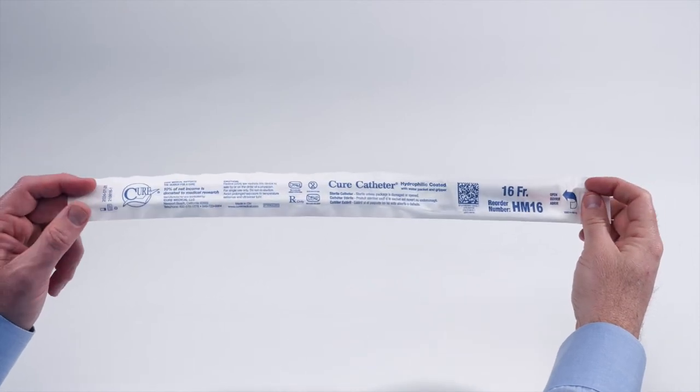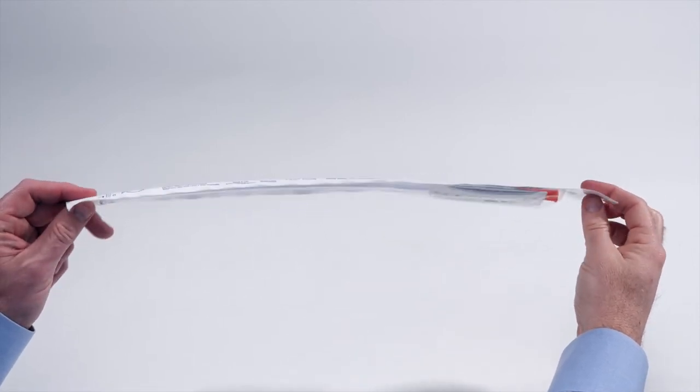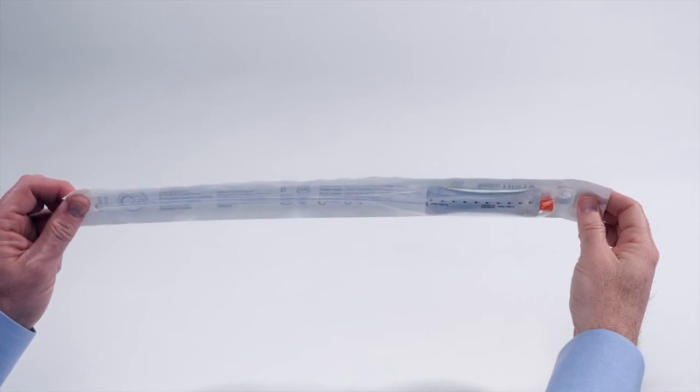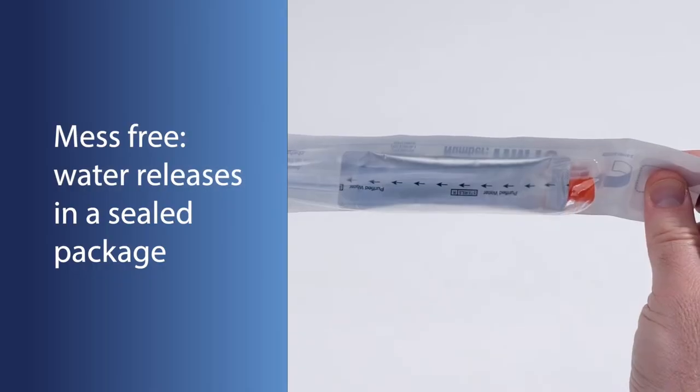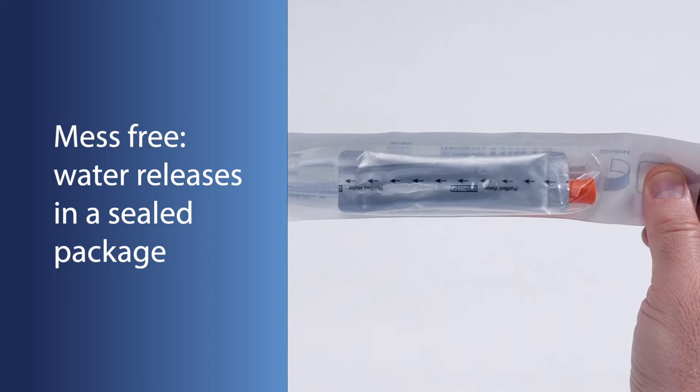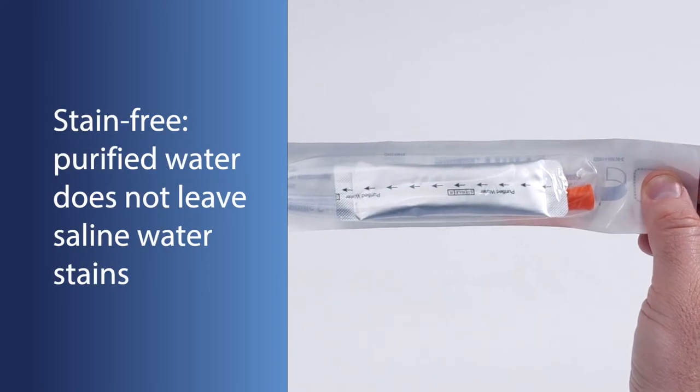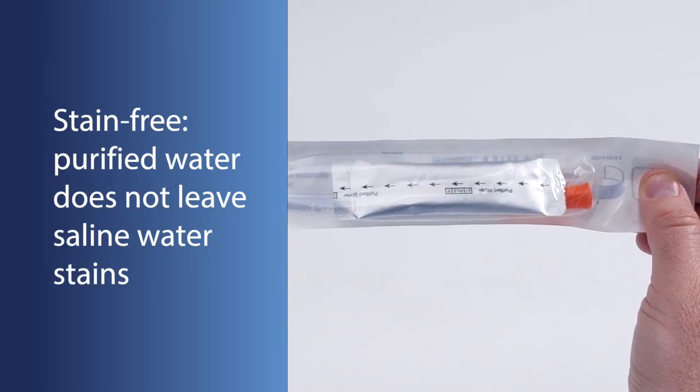Benefits such as comfort, safety and clean use make the Hydrophilic Cure catheter a great choice for men and children. The Hydrophilic Cure catheter package contains a packet of purified water for mess-free, stain-free use.